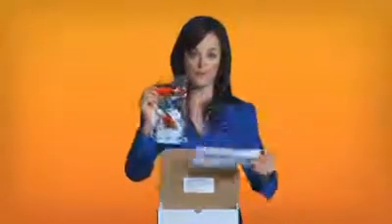Now you can prepare your sample for shipment. First, be sure not to discard the absorbent strip in the sample collection bag. Carefully place the transport tube in the sample collection bag and seal it according to the directions. Then place the sample collection bag with the transport tube along with the requisition form into the cardboard shipping box. Use the box seal to secure the box for shipment.